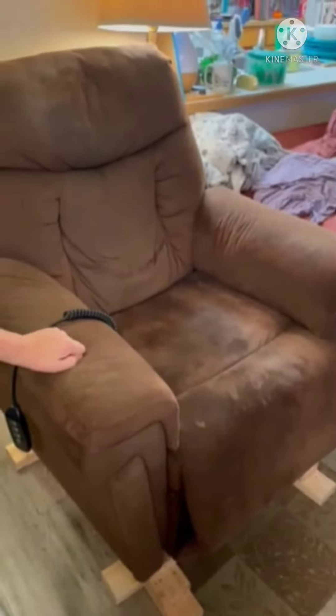Hi friends, so here's the deal. I have a lift chair over here that I've had for almost three years, but my body's gotten so weak that transferring into the chair and out of the chair has been nearly impossible. So my buddy Tom has made risers for the bottom of the chair to try and help me use it so I can get in and out of the chair.